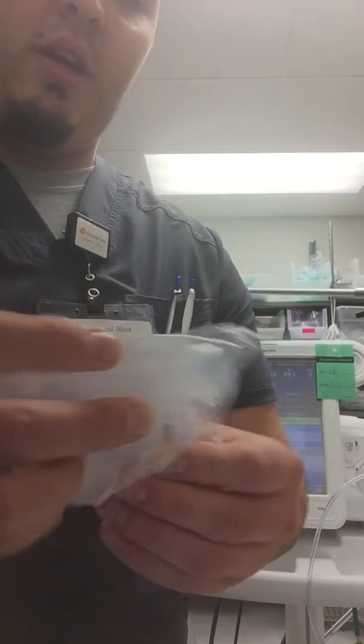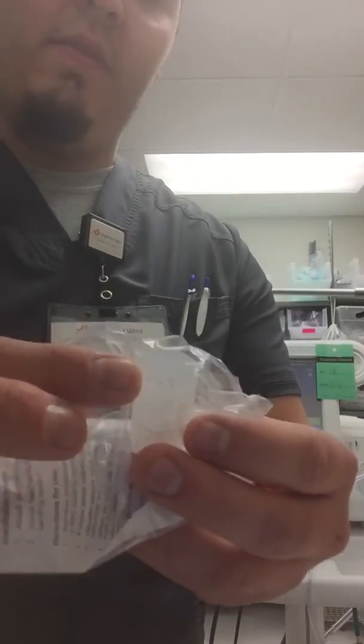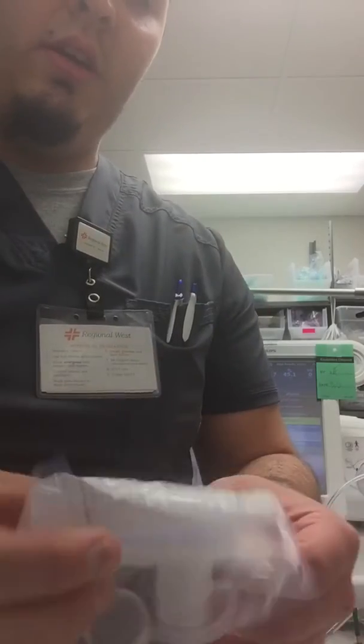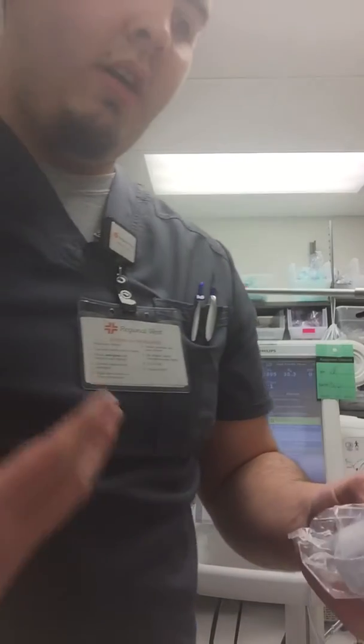And this is the neb one. So you're going to take the nebulizer and you're going to plug it right into there, so it's a one-way valve. That way nothing comes out, it's just going straight to the patient. And these treatments do take a little bit longer. However, these pieces are helpful in terms of giving a breathing treatment to a patient that needs nebulized.